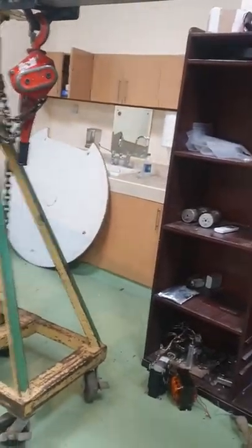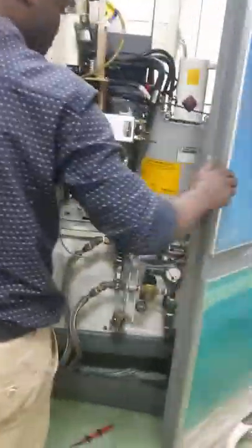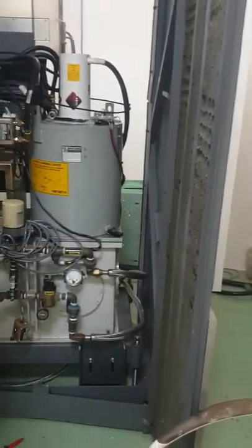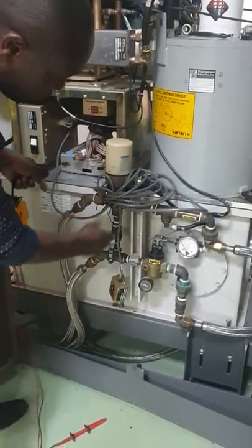This is a machine which we use to hoist heavy loads. He is now directly at the RF generator — the klystron — and the water circulation section too.